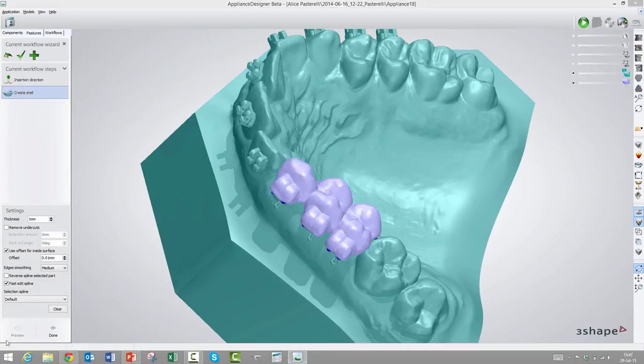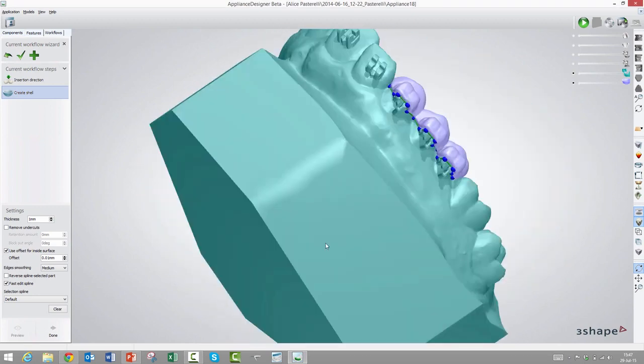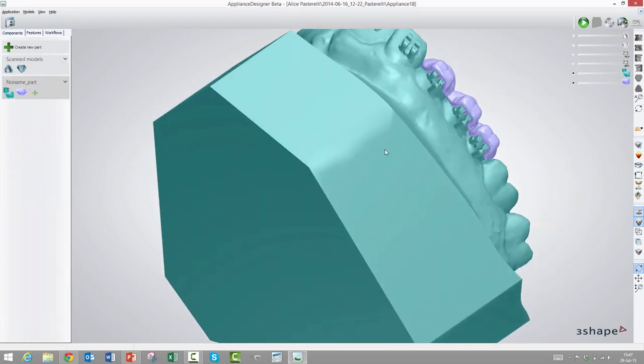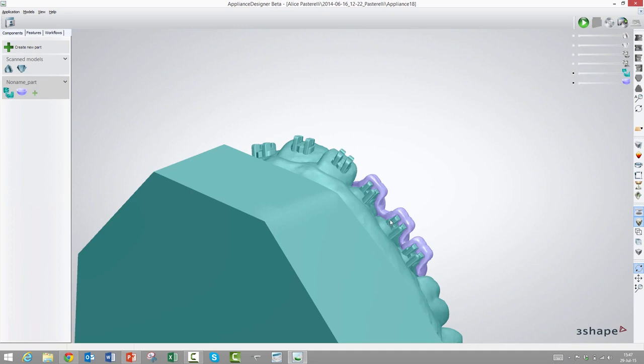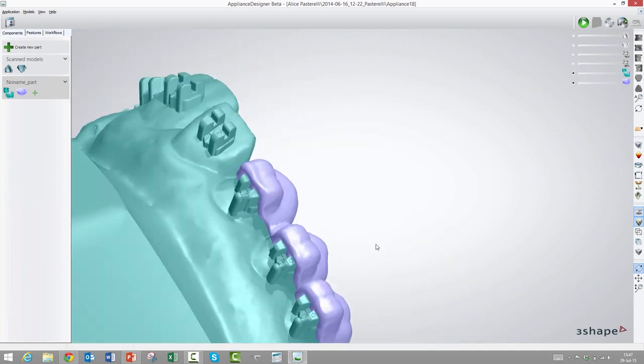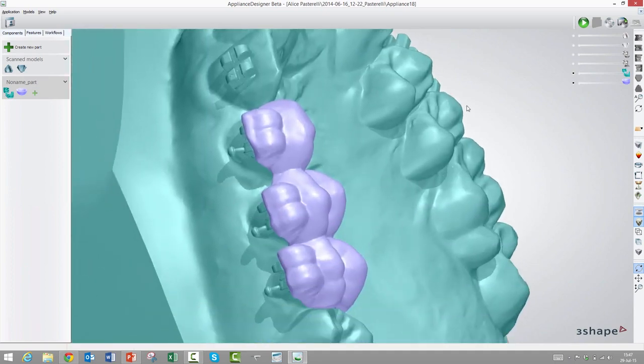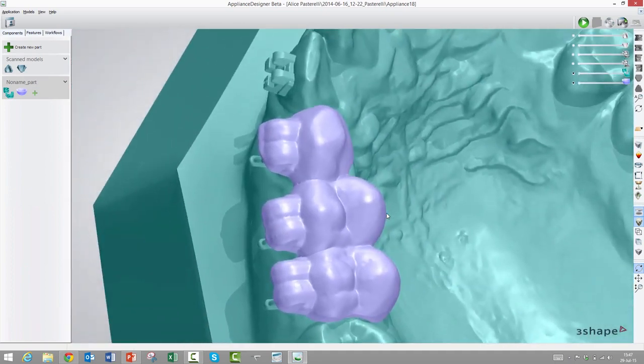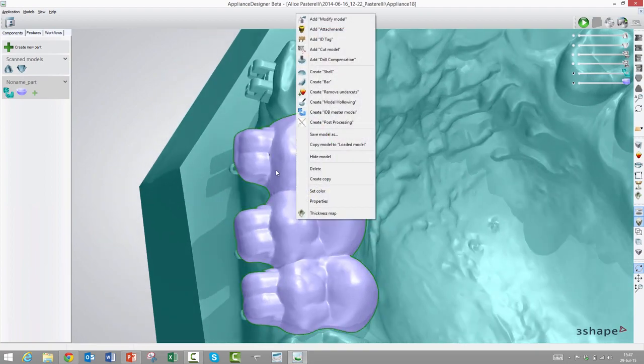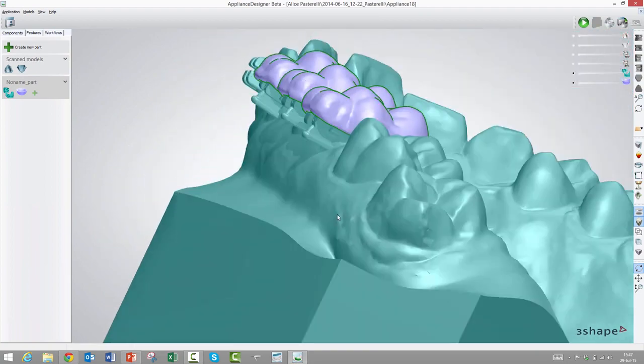So now it's done with the computations here. It looks good. As you can see, it looks like the brackets come off, and it's still hugging the brackets. One thing that we could have adjusted here with this one is to make it of various thickness.